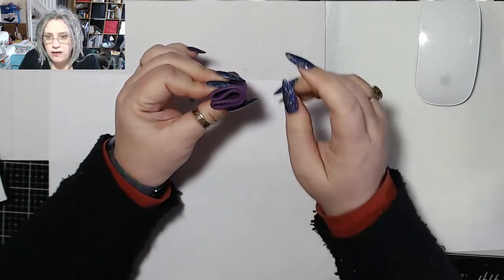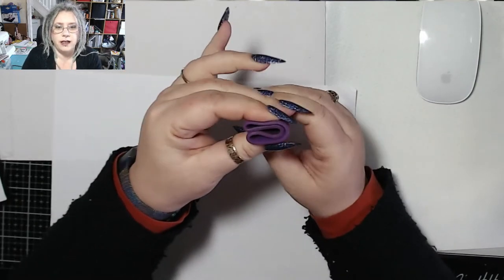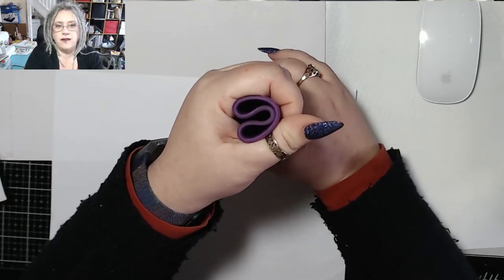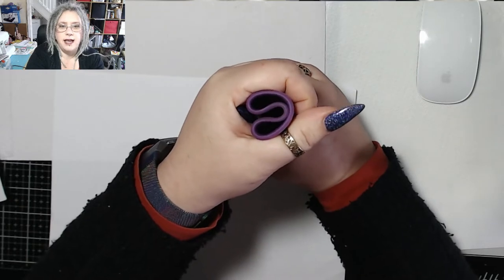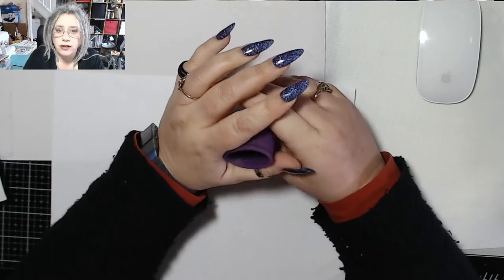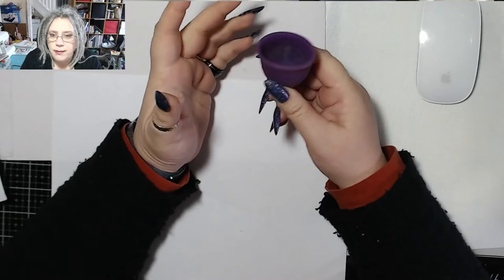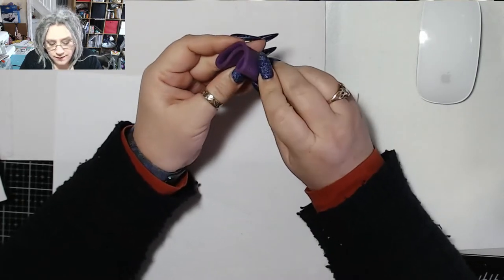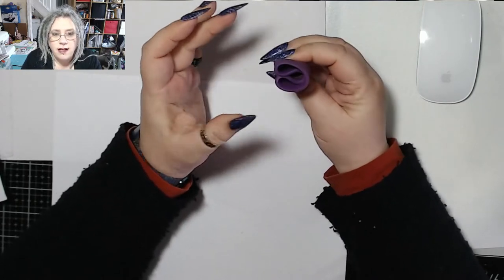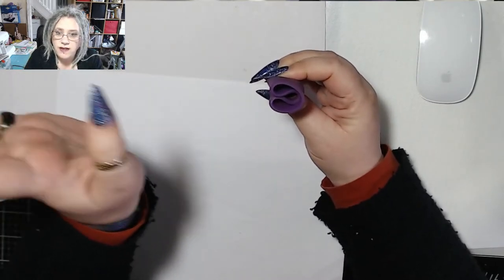There were two reasons for this. First off, if it doesn't ping open, I can always insert a finger. If you imagine this is it sitting in my vagina, I can insert a finger like this and push on the wall of my vagina to give the cup room to open. So I started doing that — literally just fold it in half like that and put it up with the two fold bits facing one of your legs.